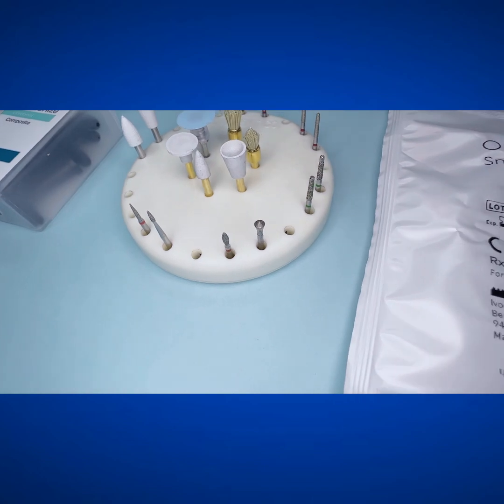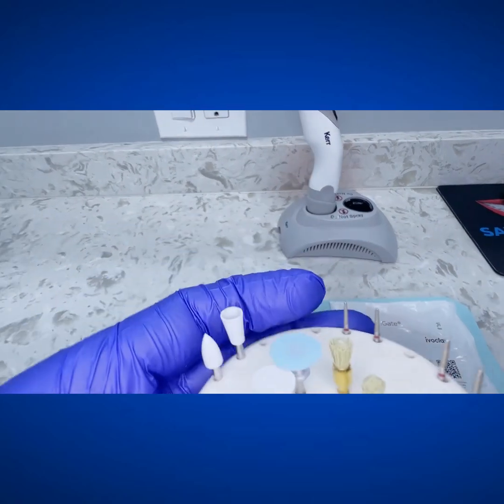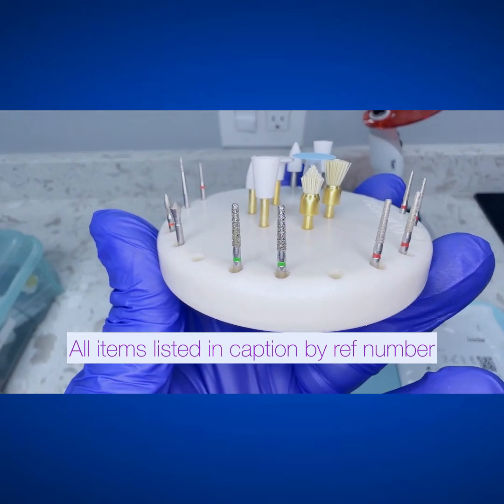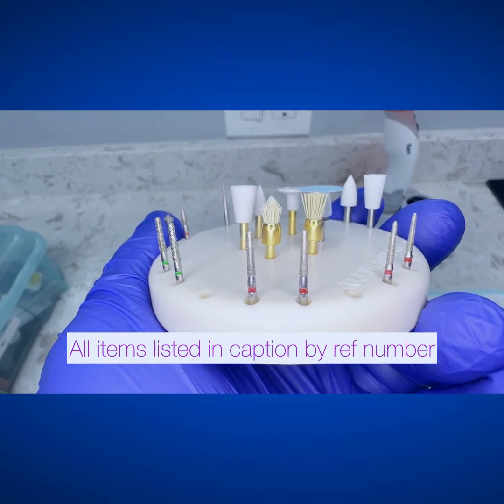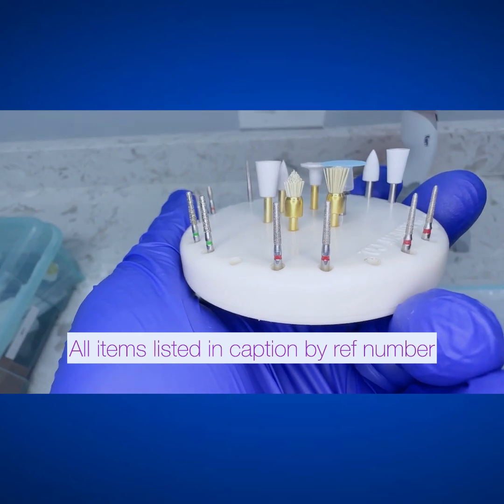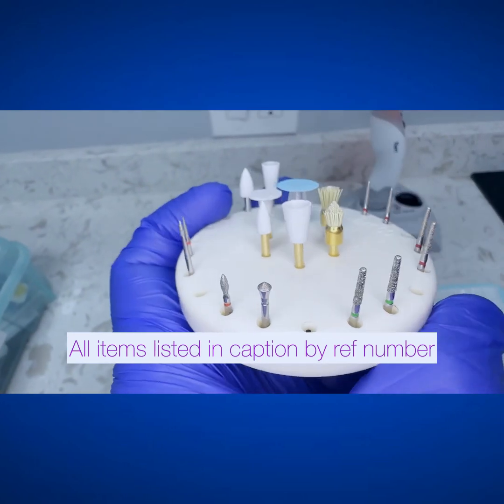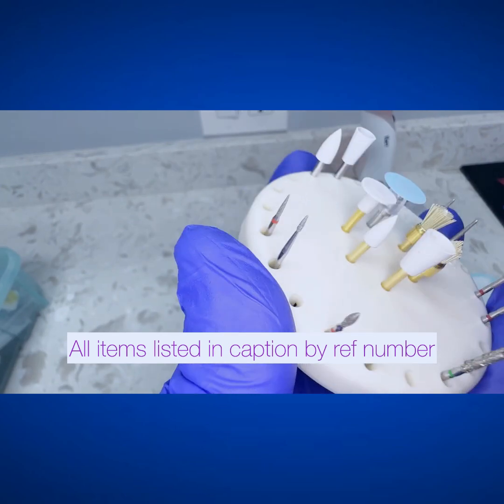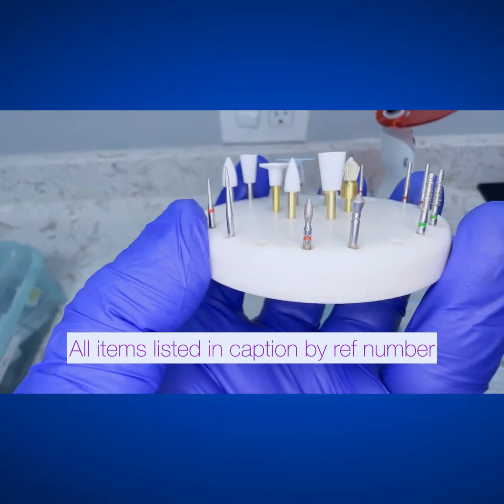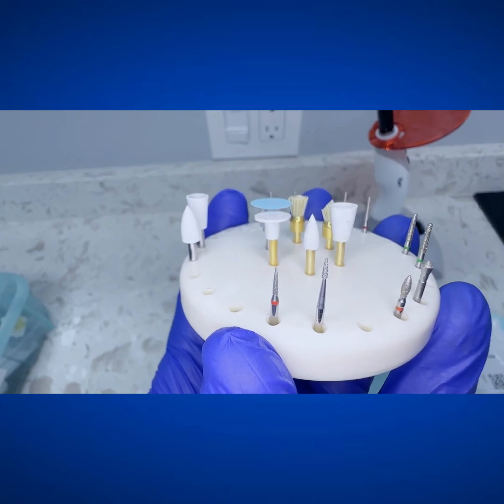They're a great one-stop shop for your rotary instruments, your polishing. I love this curing light that they have. I'm going to list everything at the end, and I'm going to list the things I actually use in this video so you can easily order these things. Definitely hit up your Kerr rep and let them know that you saw this video. They're going to be familiar with this, so they're going to know everything I list here. It's a really, really complete line from Kerr — from materials to polishing to burs.